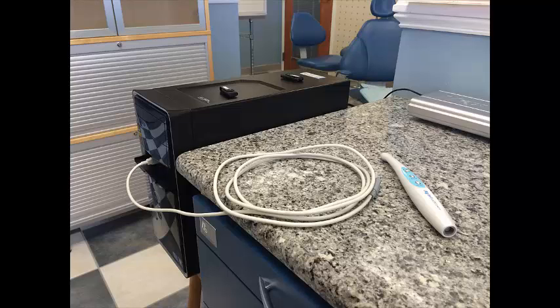I do it this way because I've had to drill access holes in the operatory cabinetry to allow for the cables to reach the patient chair without using a USB extension, which could come loose when you tug on them. In the operatories, I also don't use the powered USB hubs that I use in the hygiene rooms.